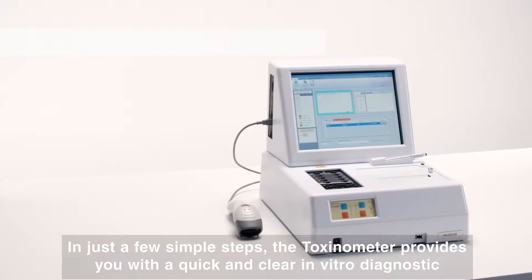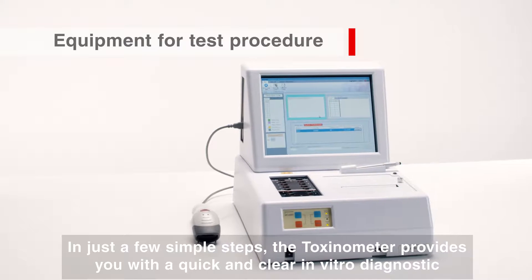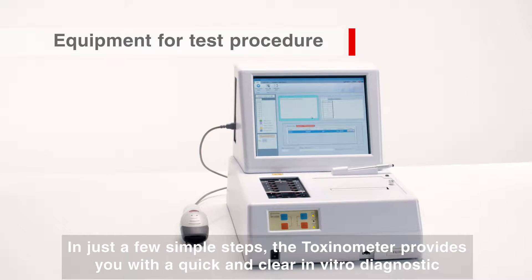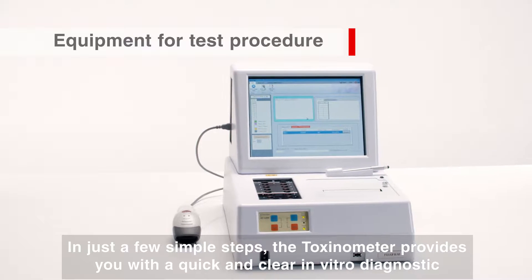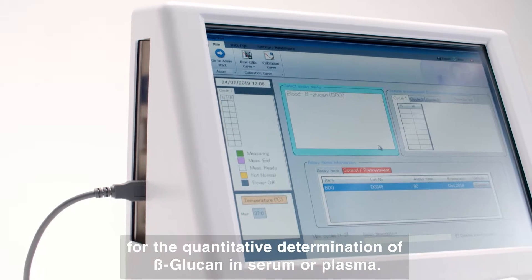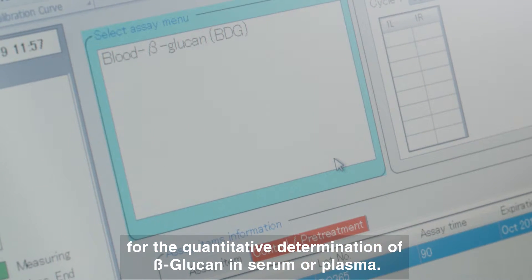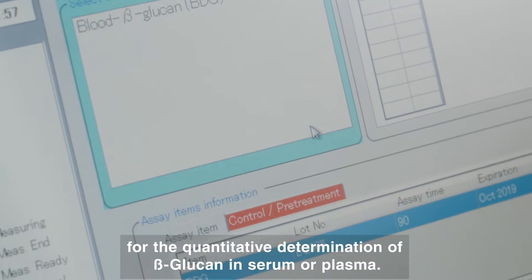In just a few simple steps, the Toxinometer provides you with a quick and clear in vitro diagnostic for the quantitative determination of beta-glucan in serum or plasma.